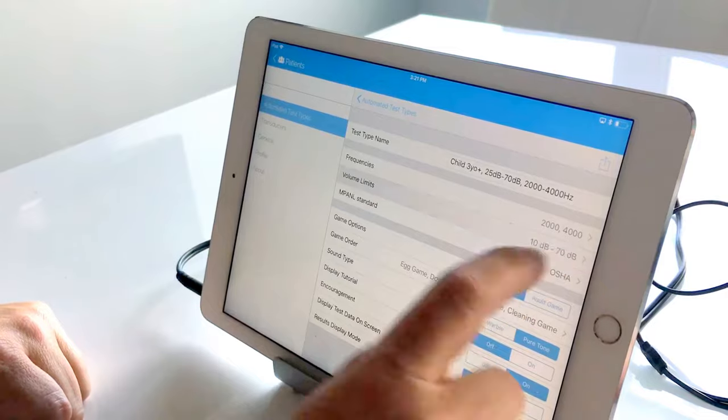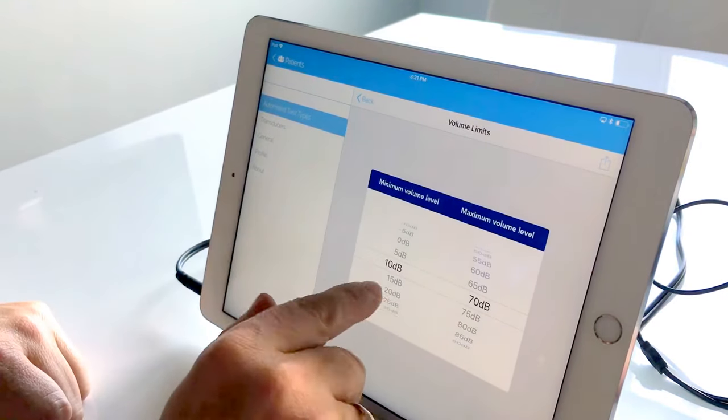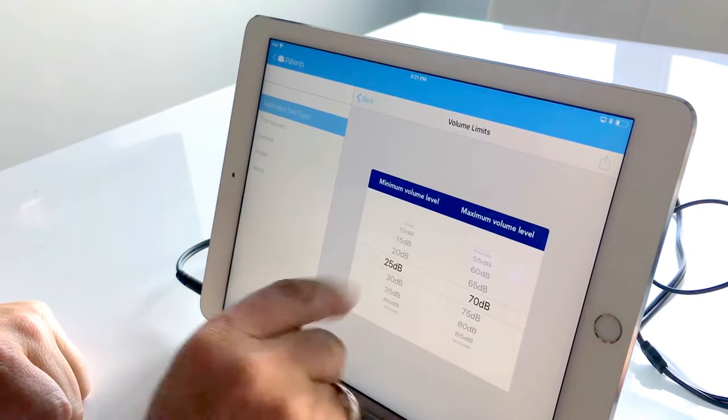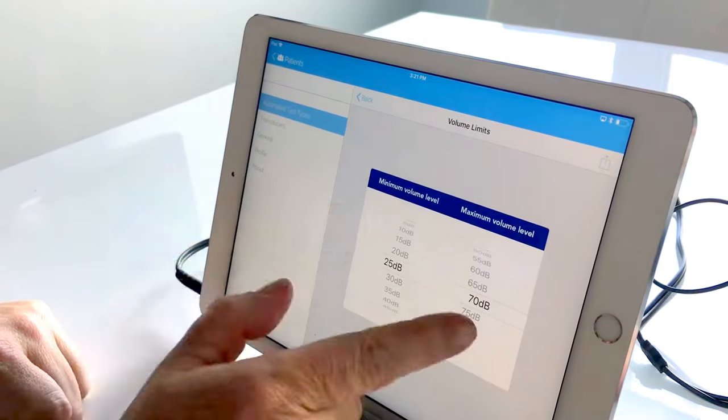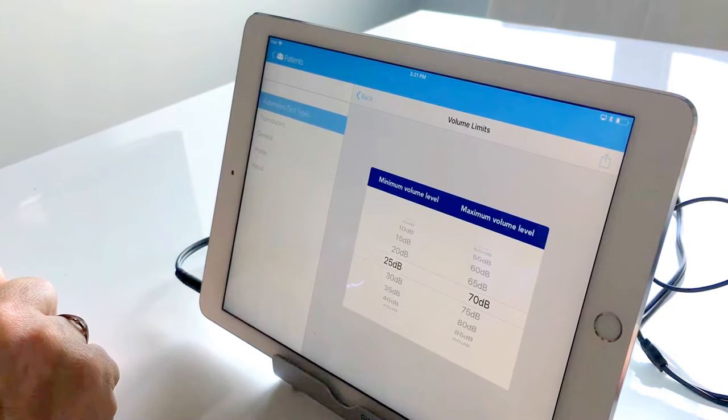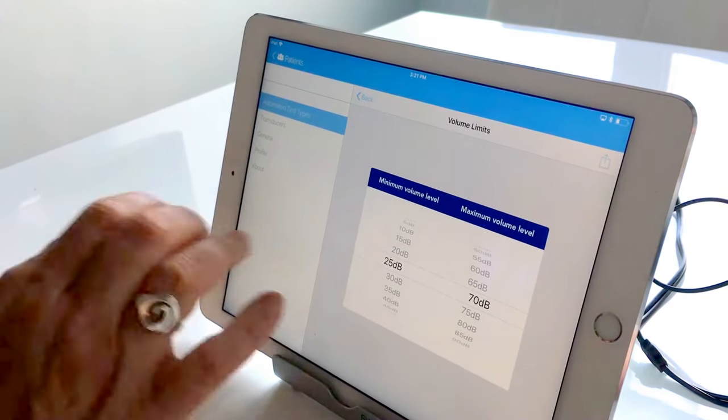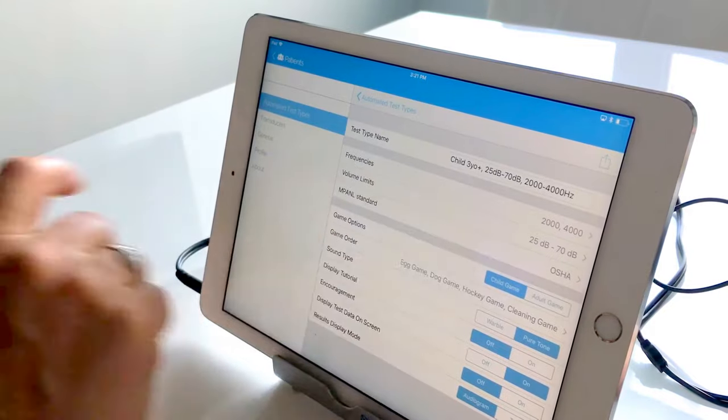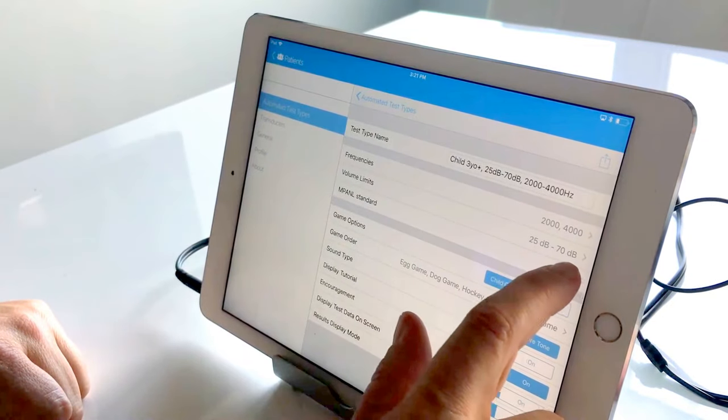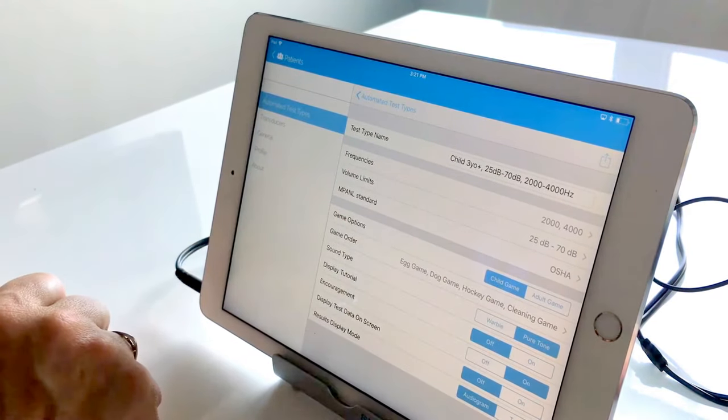Next we will go and adjust our volume settings. So we mentioned that our lower testing volume we want to stop at 25 and our maximum volume level is already set to 70. So we are all set. But once again when you come back you can actually reconfirm this with what's in your title.